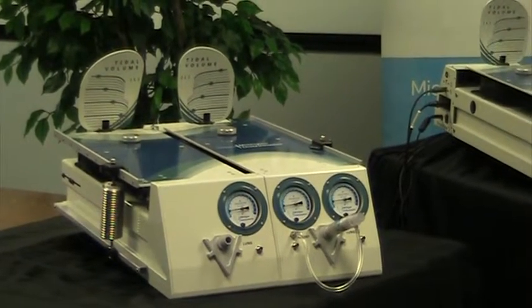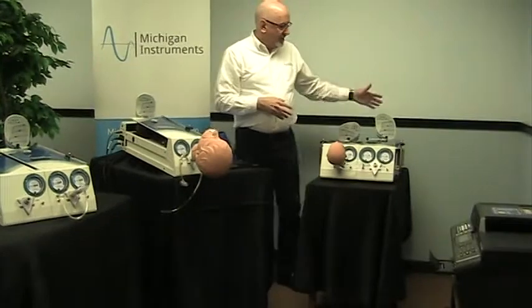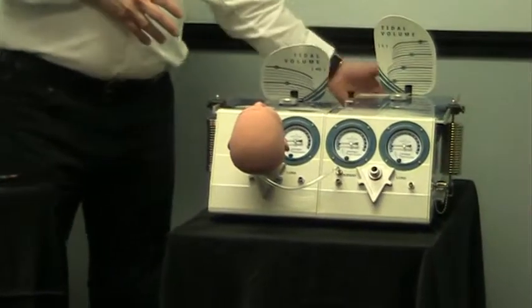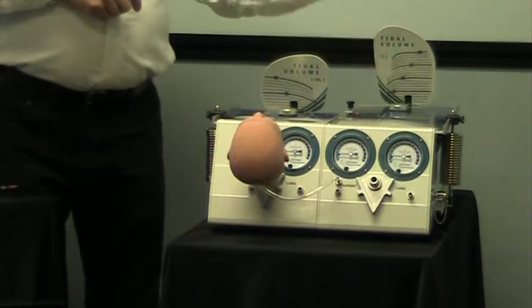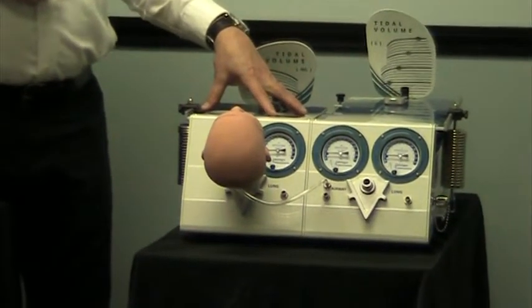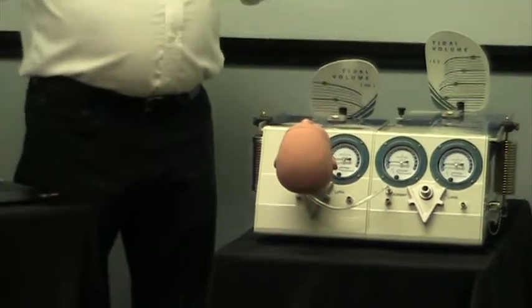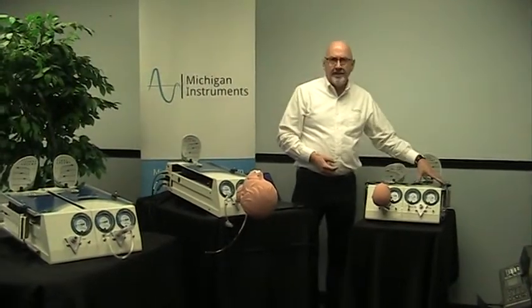You can be driving one of those lungs — the right lung — with the SBL. And then there's the adult-infant configuration. The SBL module can be placed into the adult side of this system, giving you the ability to do spontaneous breathing with the adult lung. And you can even, through the use of a coupling clip, do spontaneous breathing simulations on the infant lung as well. You can disconnect that coupling clip and still use them independently, so you still have the same kind of use and applications available as on our traditional TTL and NuView systems.